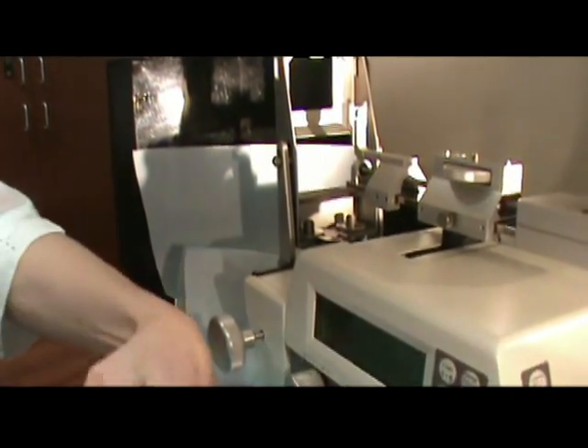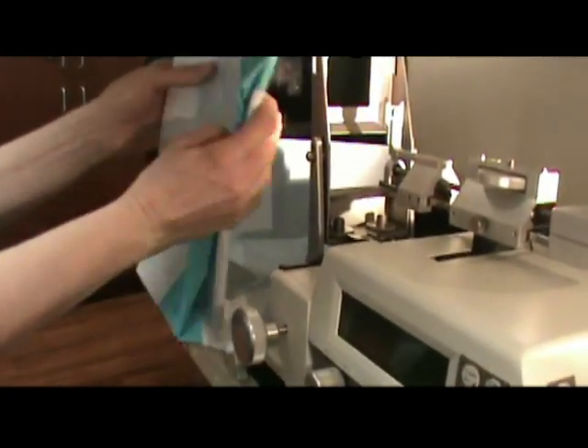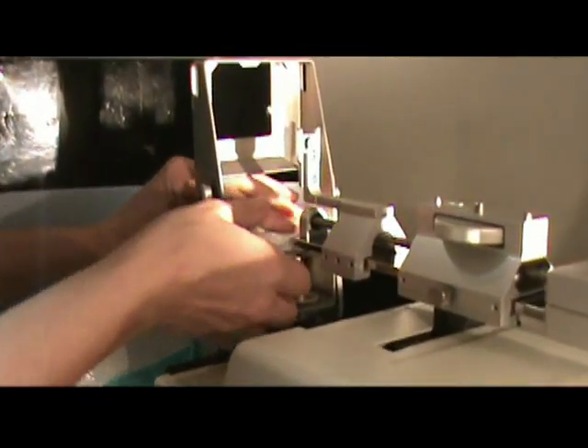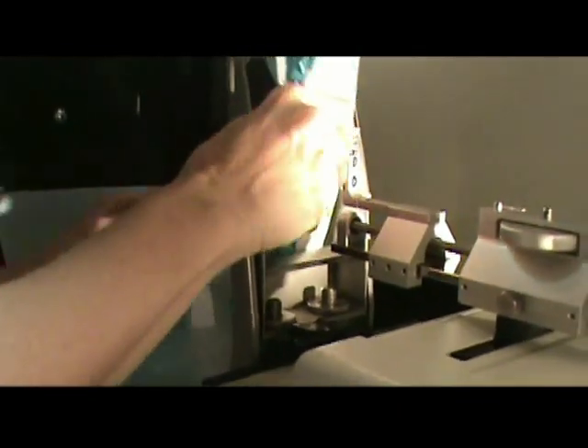The rest of this you can fold just like this. We're using the smaller paddle on this one, so I just fold it in half to put it through the paddle area and kind of off to one side so we can open it up.